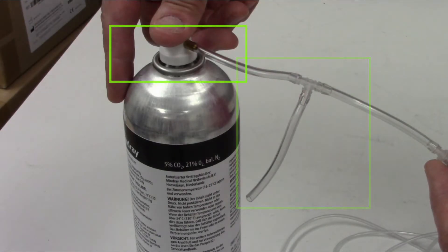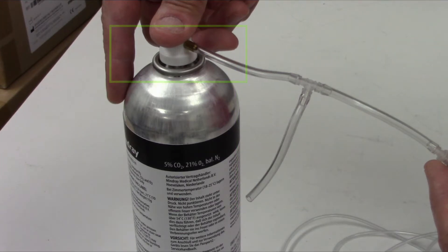To attach the push button, simply push it down on top of the gas cylinder and make sure it's seated like so.